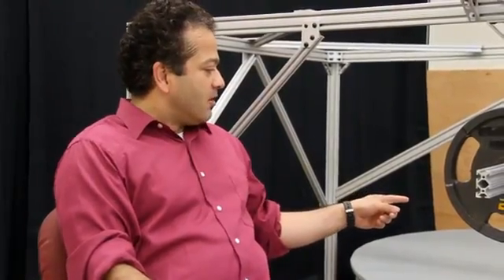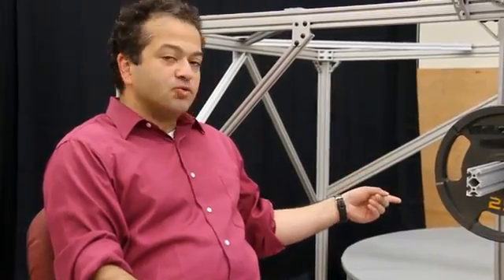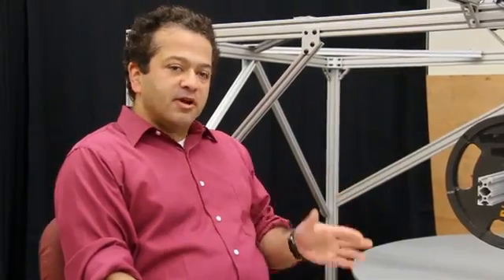This is the prototype of a powered ankle foot prosthesis. It has two controllable degrees of freedom and it's capable of steering and changing the direction.